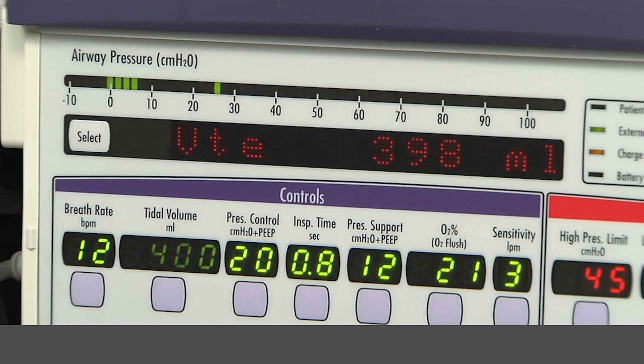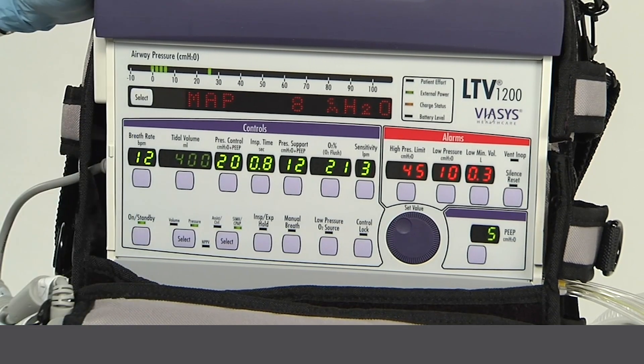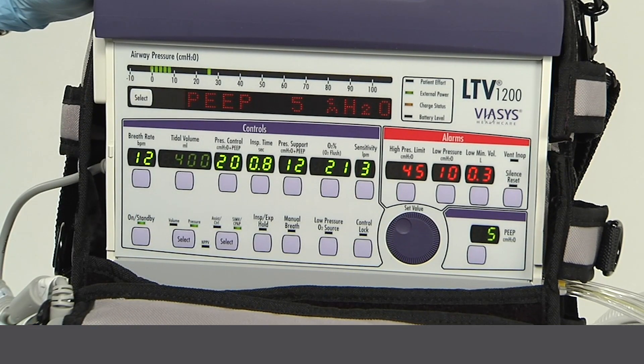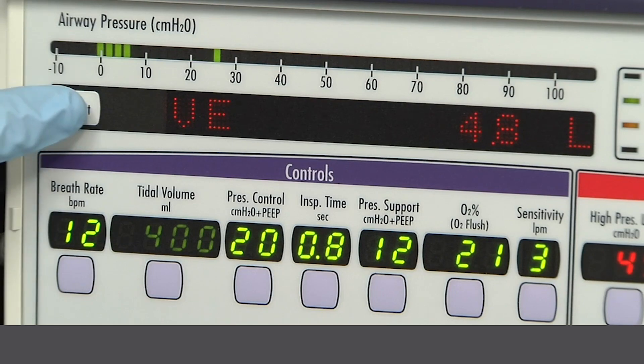To automatically scroll through the data, push the select button twice in rapid succession. To stop the data from scrolling, push the select button once.